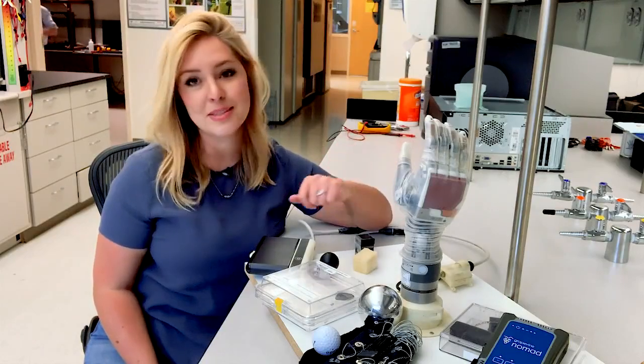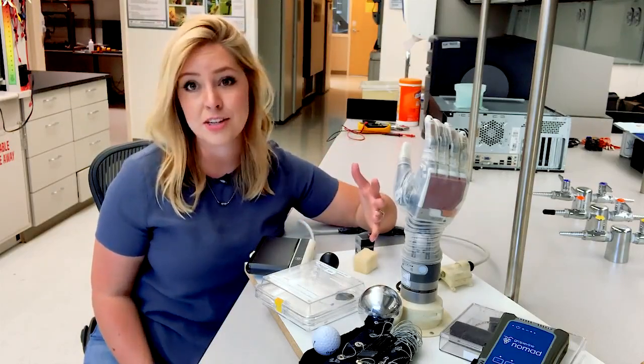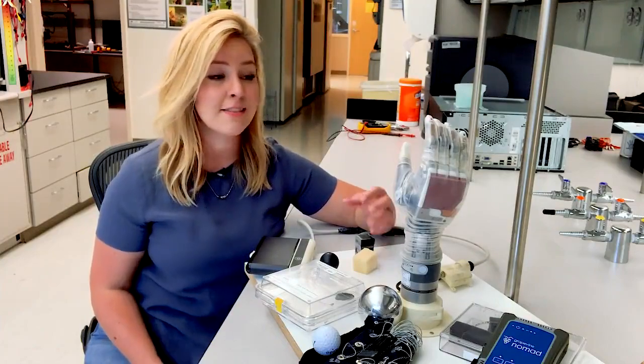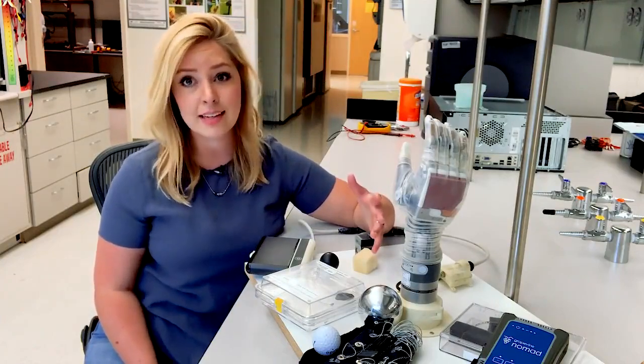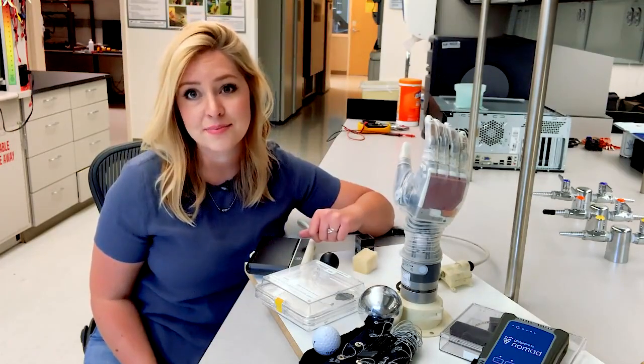The Luke arm, yes, named for Luke Skywalker, is not science fiction anymore. This prosthesis is a very real and near reality for amputees in our state. This is something that people will be able to see in their lifetime.